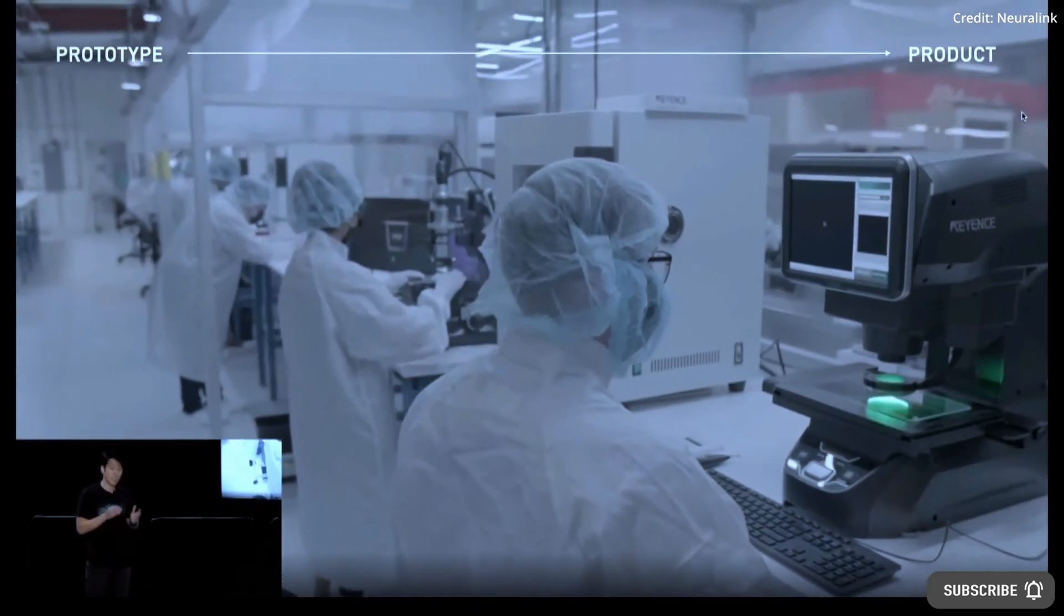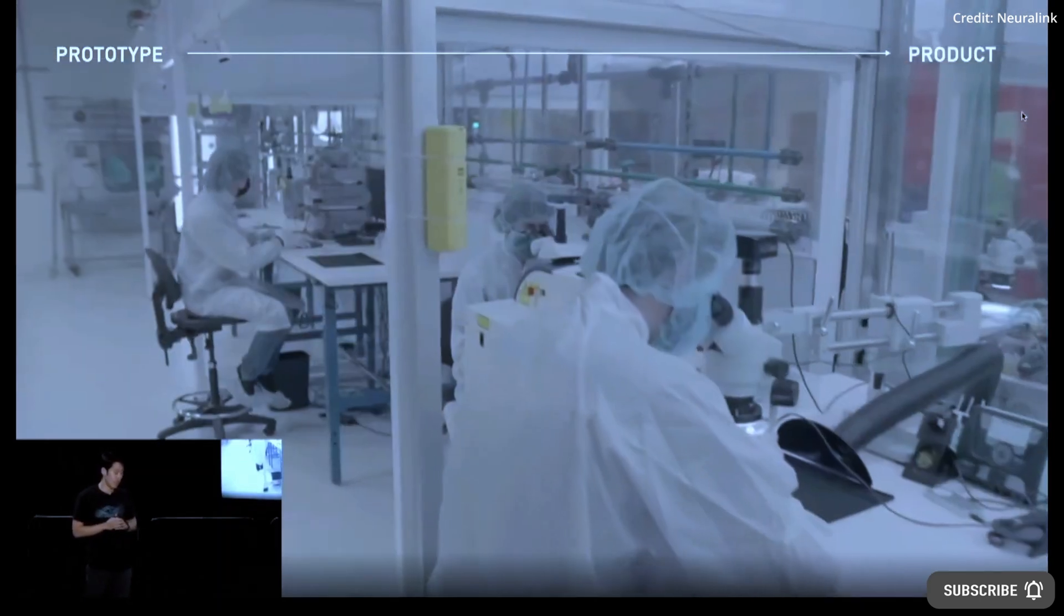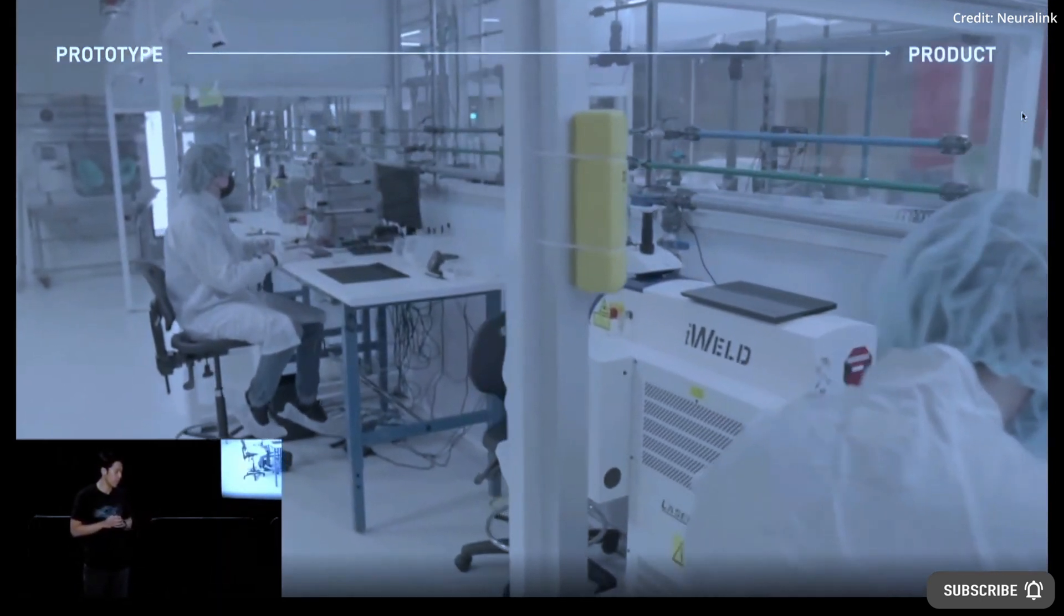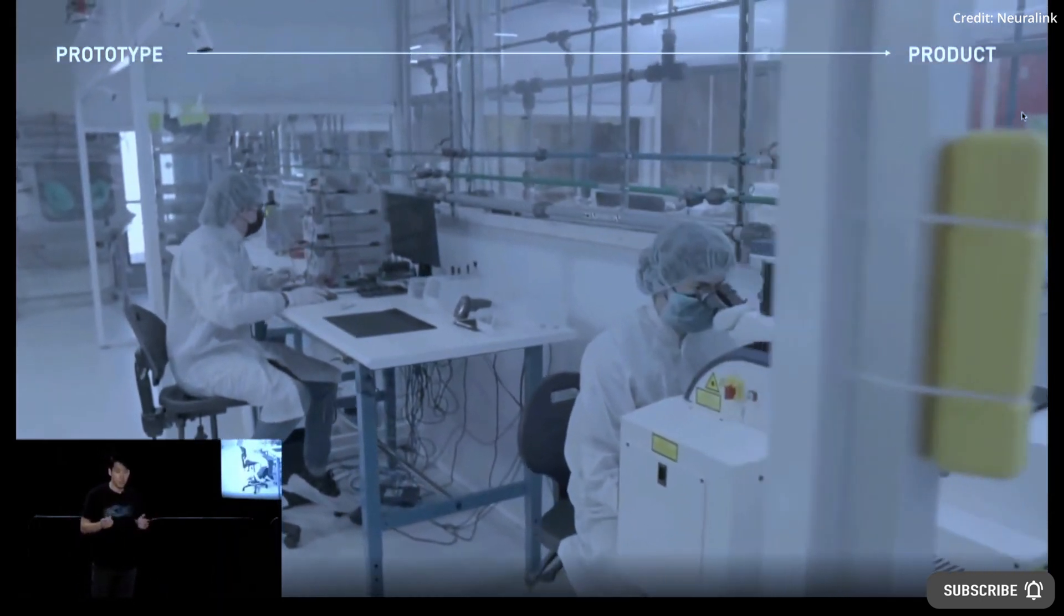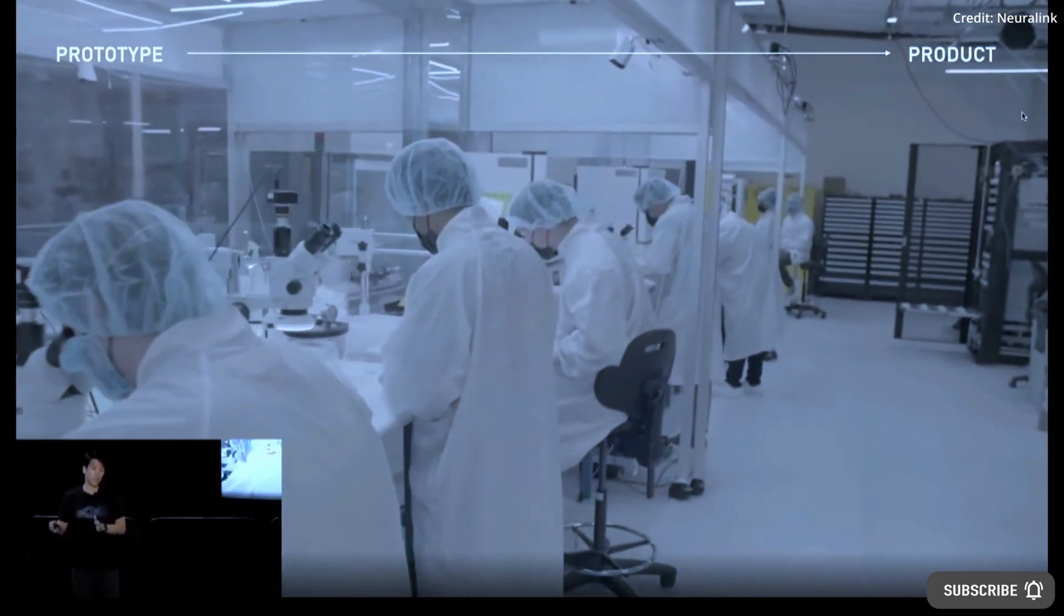Neuralink is designing its N1 Link to connect to thousands of neurons in the brain, so that it may one day be able to record the activity of these neurons, process these signals in real time, and translate intended movements directly into the control of an external device.